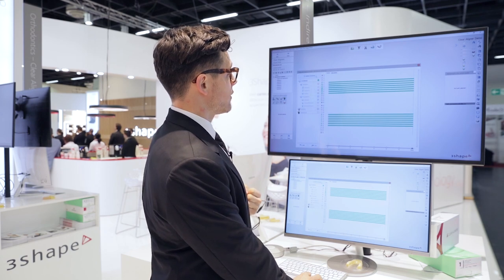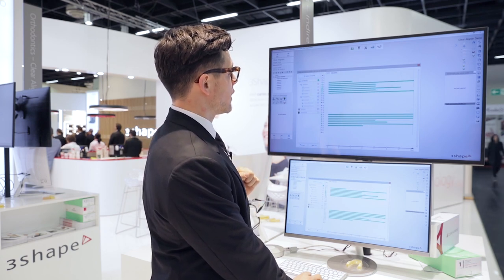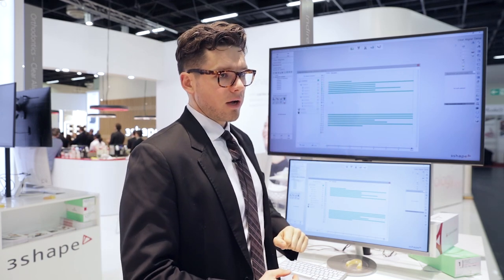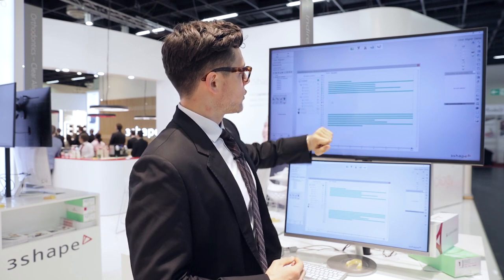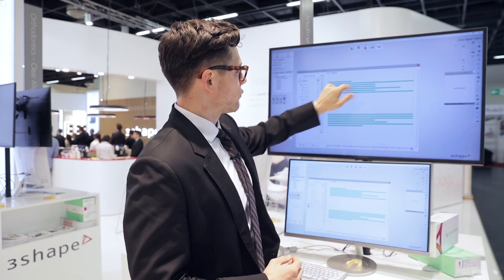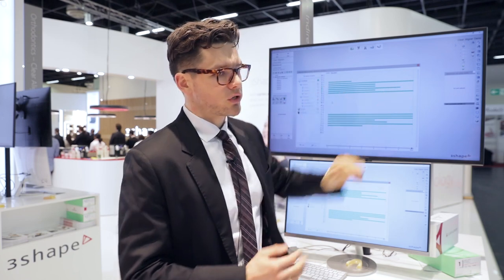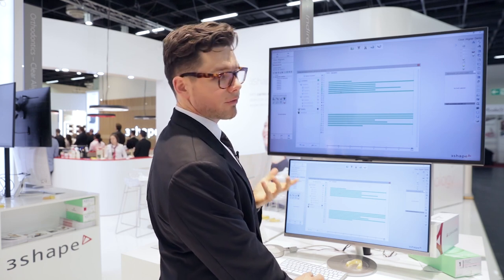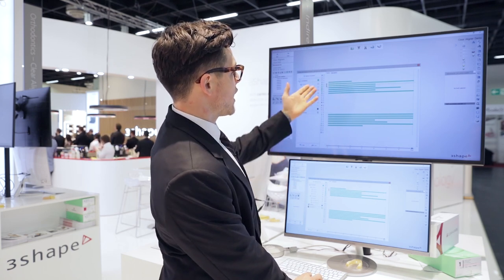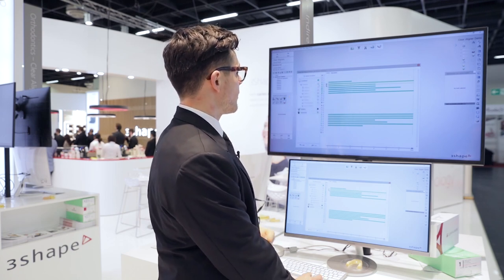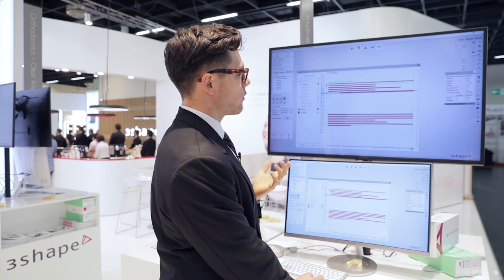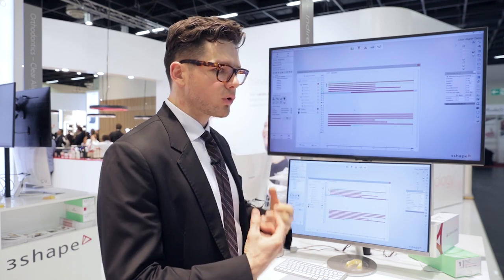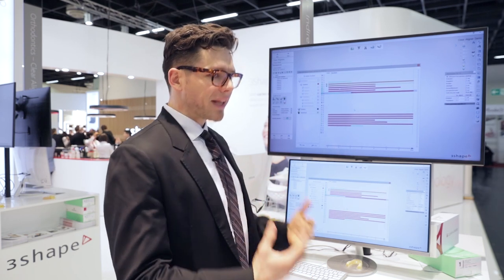I can even optimize the whole treatment by clicking the optimize movement button, and you'll see it actually shortened down the movement duration for a lot of the teeth — because for instance, on the 14 you only needed to move that tooth for the first two stages, whereas the 13 you need to go through the whole set. I can also see when the stripping will occur, where attachments go, and which teeth will have them. I can see specific movements and delay them — for instance, I can delay rotation on a tooth to stage two. It's a very powerful tool to help you visualize and plan out your treatments.